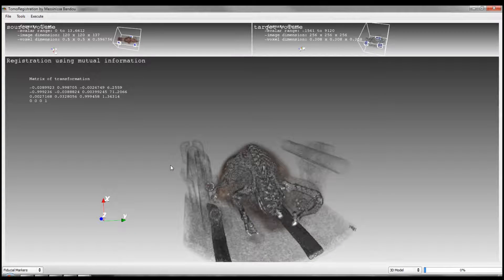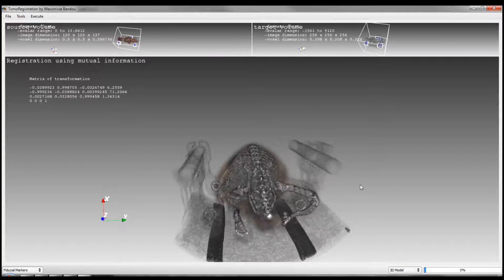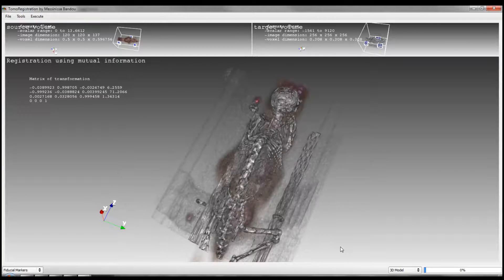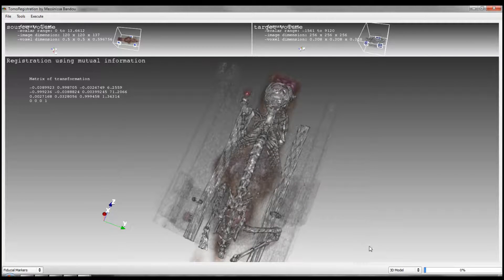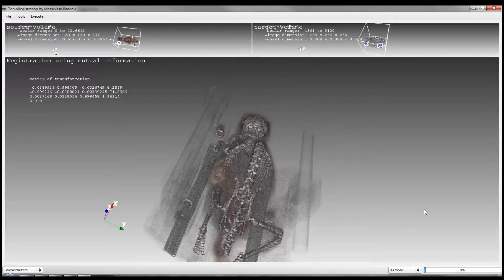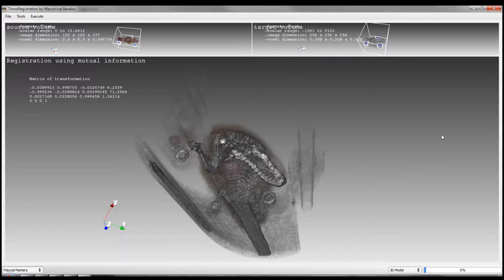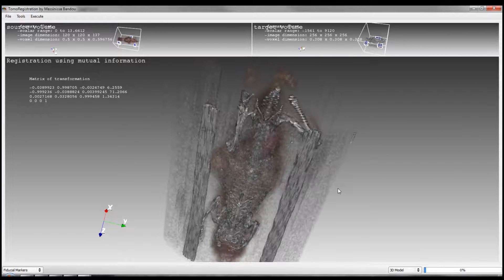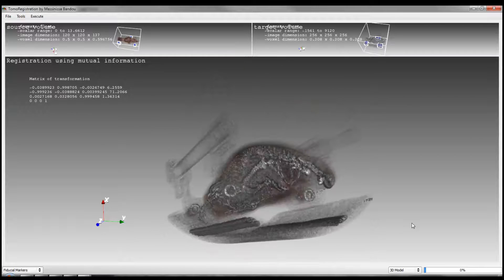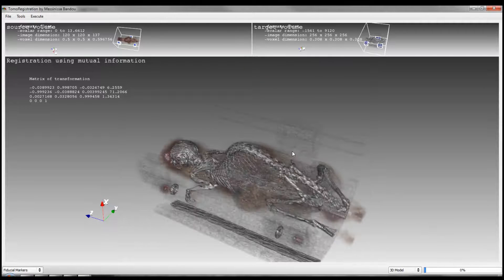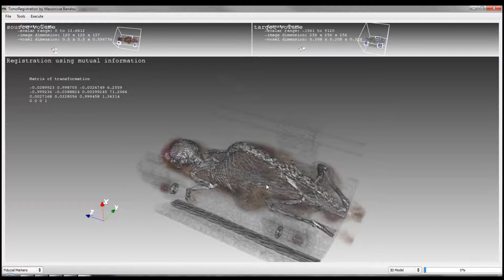This is my final result for PET-CT registration. I hope you enjoy. As I said, I will not comment in the second part. I hope you like it. Thank you.